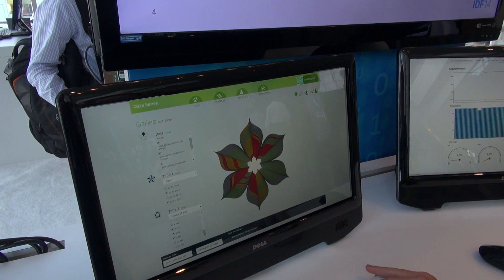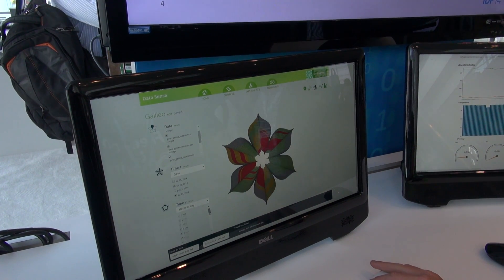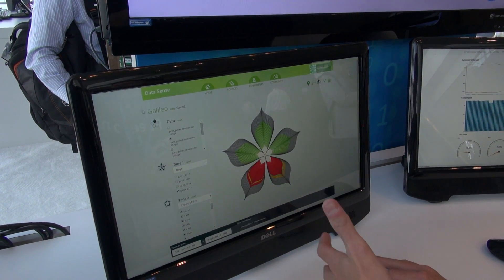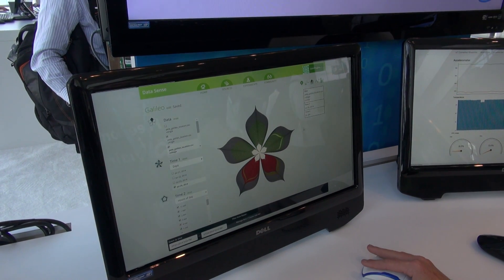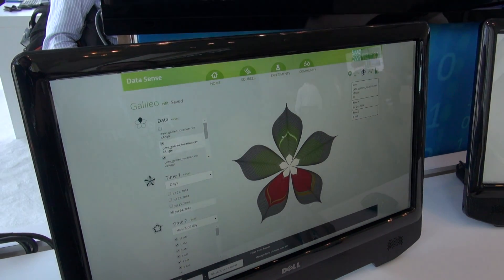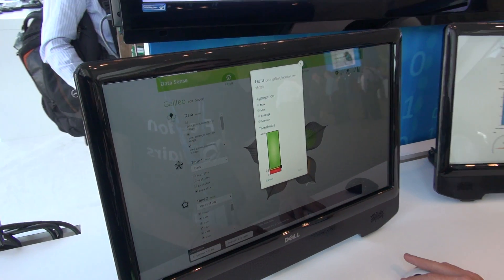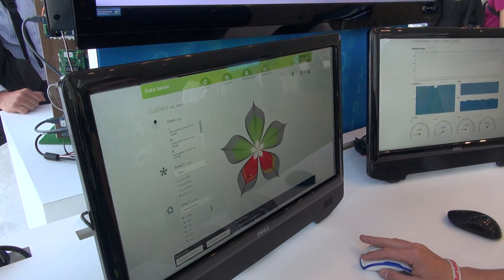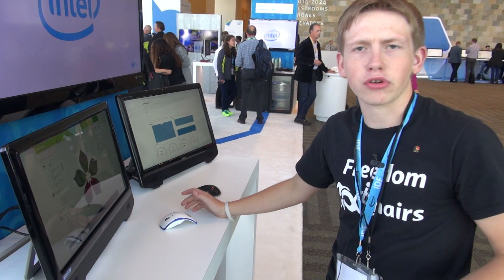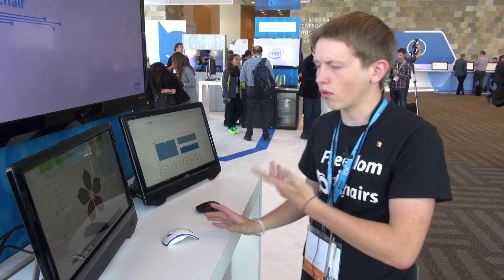You can show different kinds of things — different days and our data — and filter what you want displayed. It will change, render, and bring everything up. Each of these petals represents a different kind of data, and this axis shows your days. This is the time of day. For example, at 6 p.m. on July 24th, our angle is 3.95 degrees. If you had a major angle event like the wheelchair flipping, you'd be able to look back and see this and self-diagnose — being part of the quantified self movement.